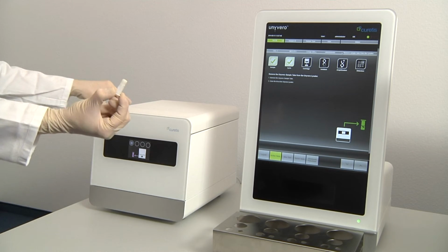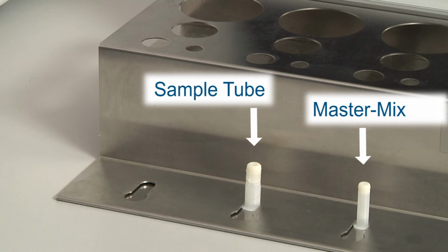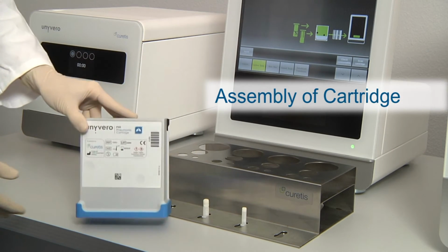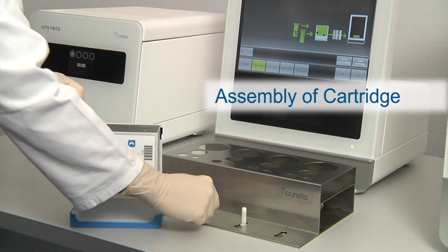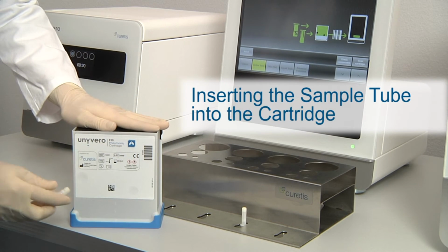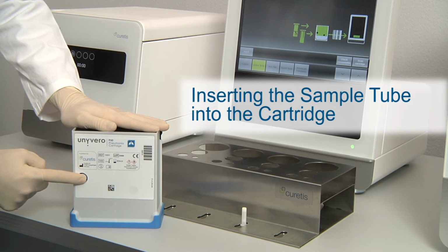Close the lid of the lysator and place the sample tube in the sample tube holder where the master mix is already waiting fully thawed. Get a cartridge and plug in the sample tube and master mix tube into the openings. For this purpose, the paper cover must be fully pierced and must not cover the barcode.